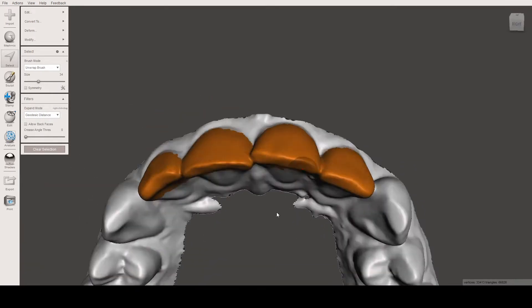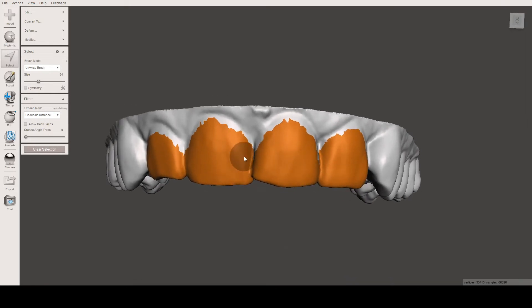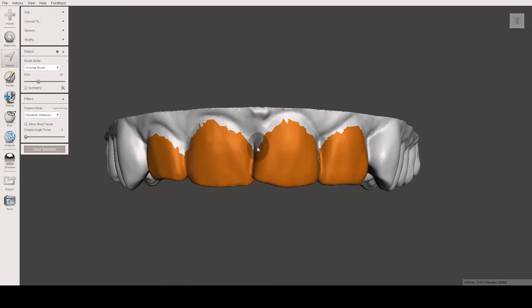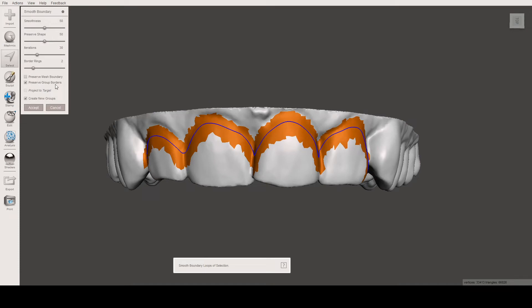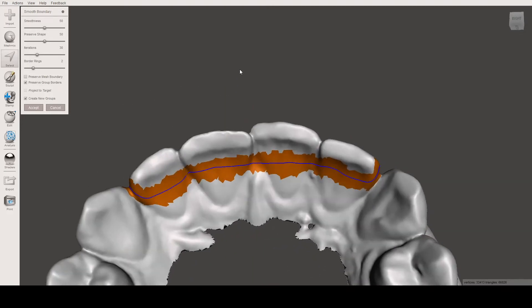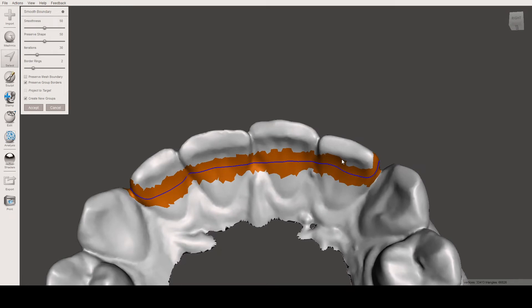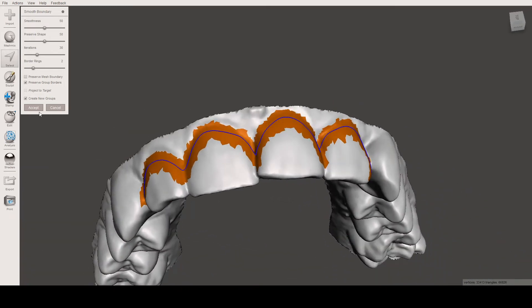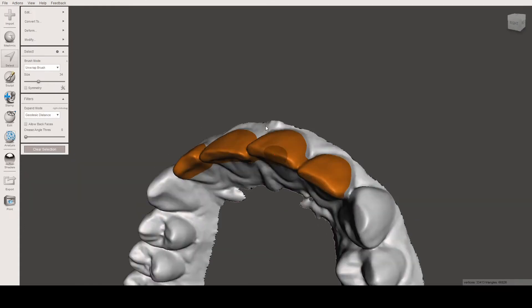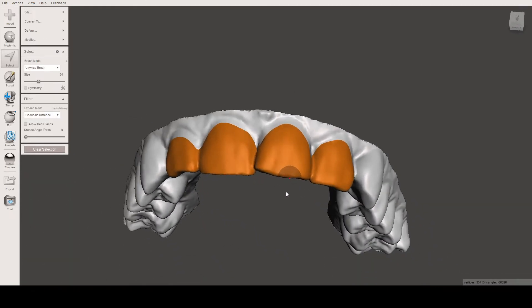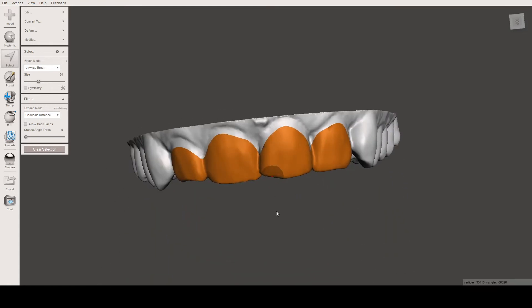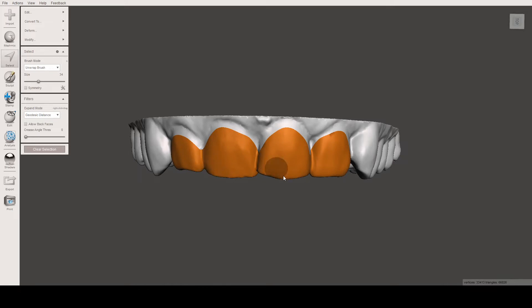That's the first step. The next step is to smooth these borders. To make the borders smooth, we press B. As you can see, we have the smooth boundary option, and these lines show the borders it will create. Just double-check it and click Accept. As you can see, we now have smooth borders all around.